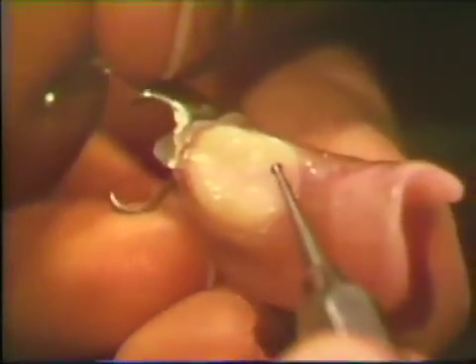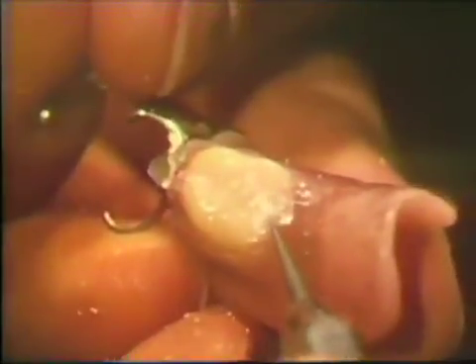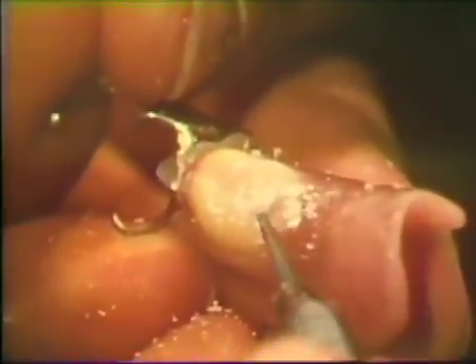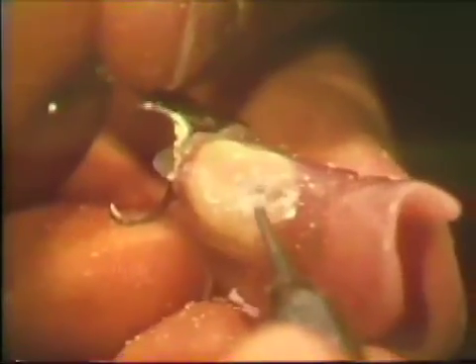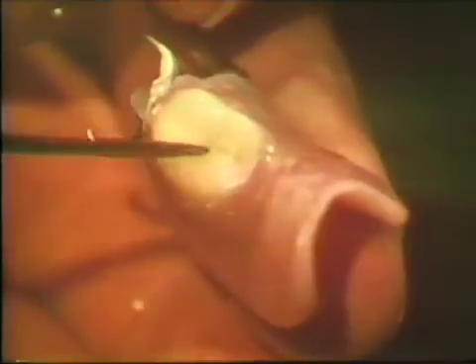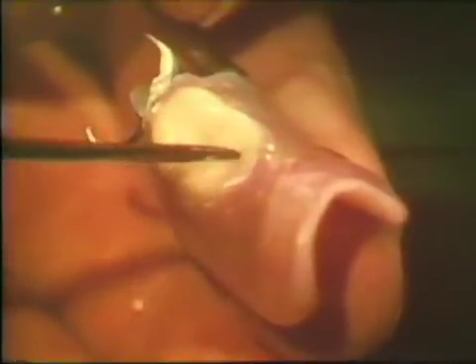The anatomy of the replacement tooth that was destroyed by occlusal grinding during the setting and adjustment procedures can now be reformed. Care is exercised to maintain centric occlusal contacts.